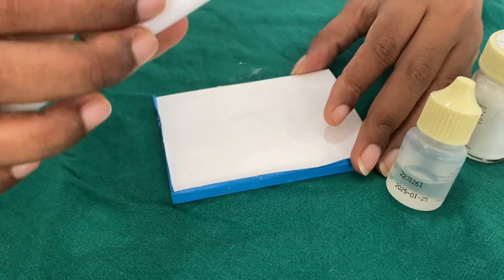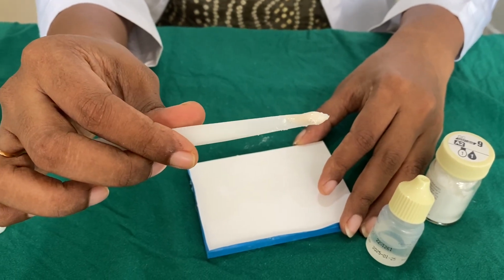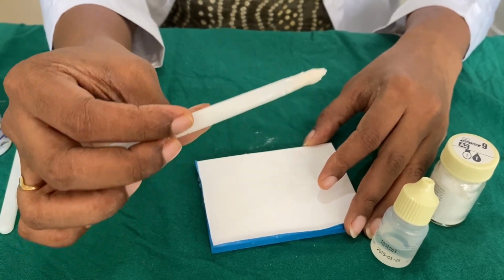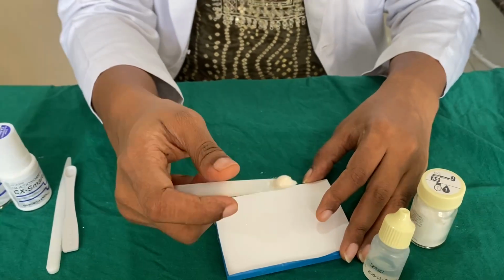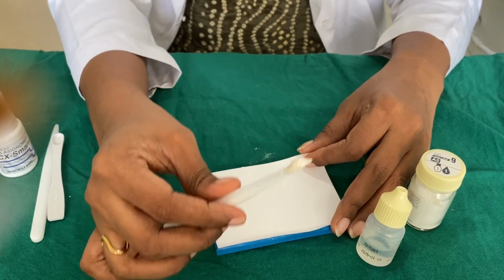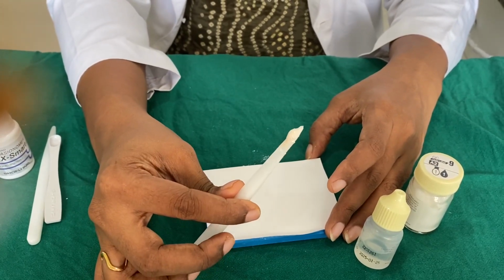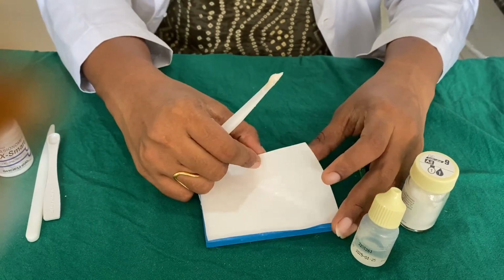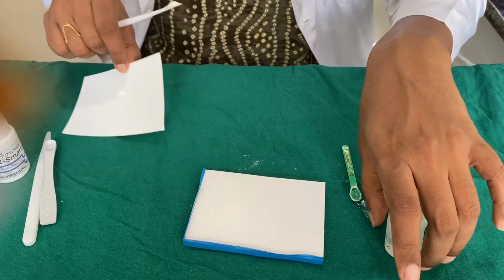So this is a thicker consistency of glass ionomer cement and how it is used in stress bearing areas. This particular type 9 cannot be utilized in thinner sections or in thinner consistency, hence thicker consistencies are always recommended for type 9 glass ionomer cements. So let's go to the type 1 glass ionomer cement manipulation.